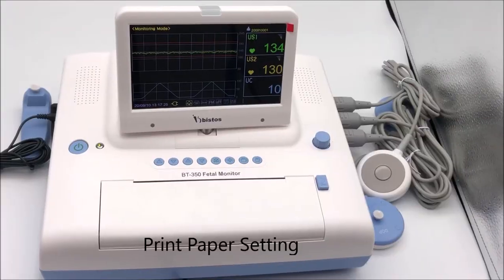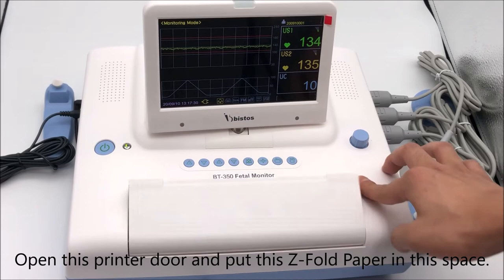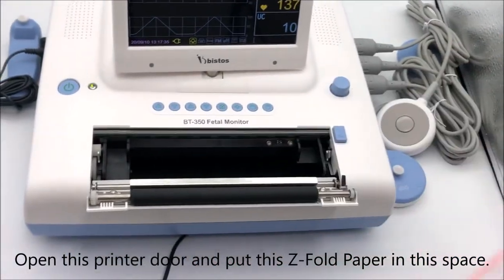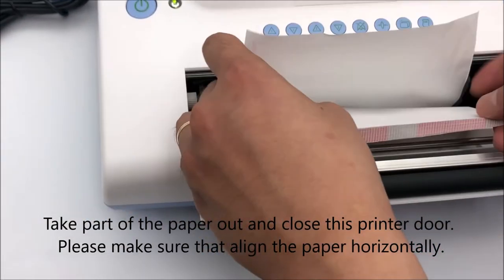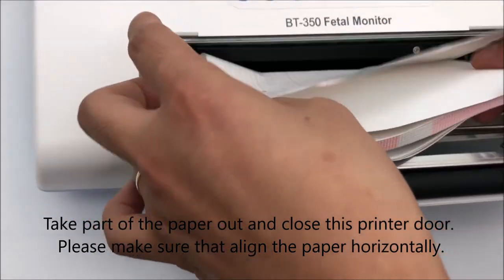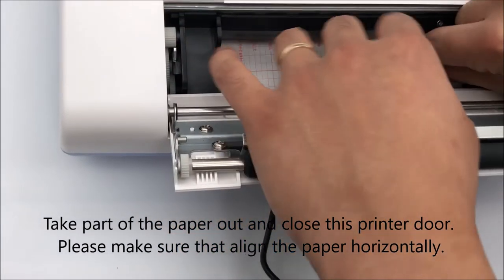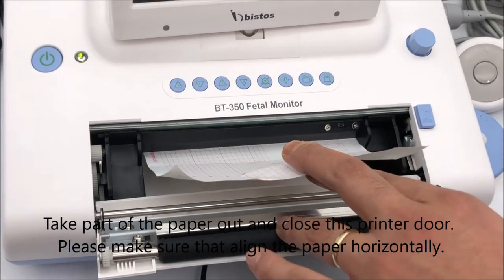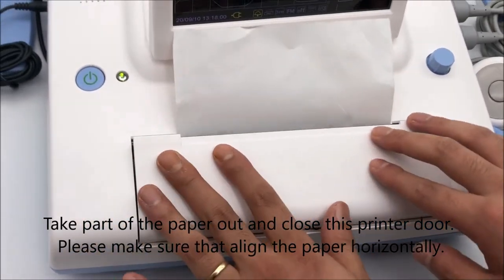Print Paper Setting: Open the Print Door and put the Z-fold paper in this space. Take part of the paper out and close the printer door.